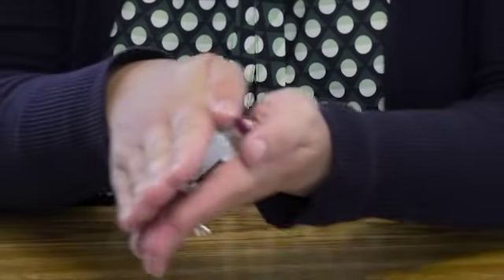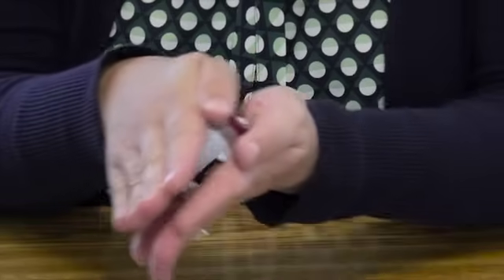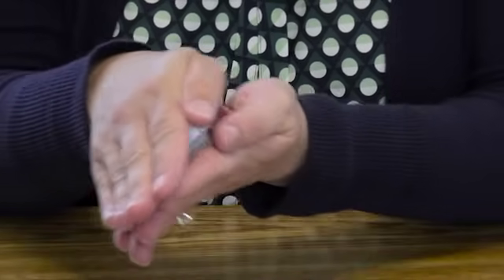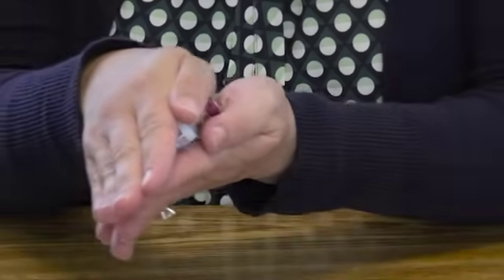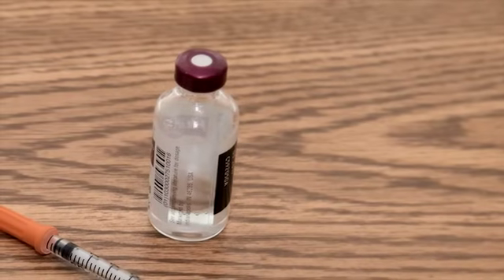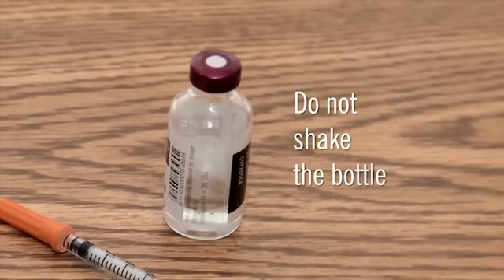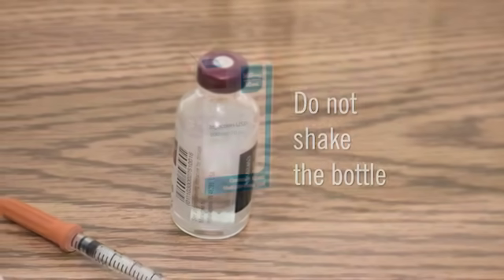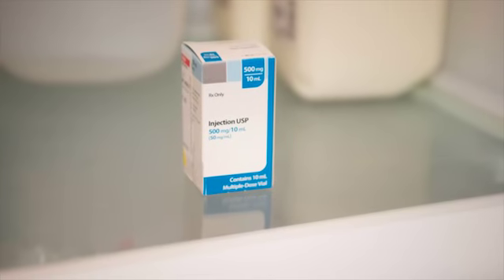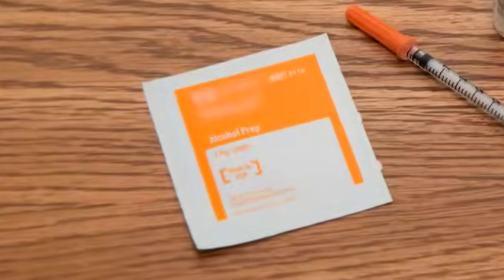Begin by washing your hands. If the bottle of insulin appears cloudy, roll the bottle in your hands and turn it from side to side for one full minute. You do not have to roll the bottle if the insulin is completely clear. Do not shake the bottle.